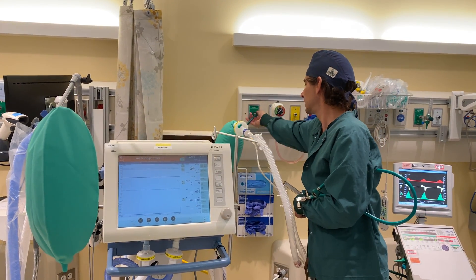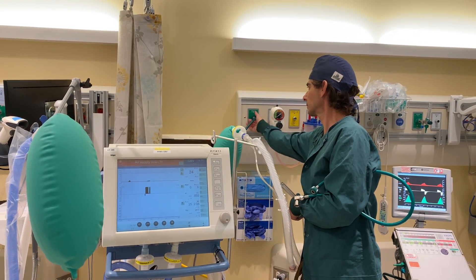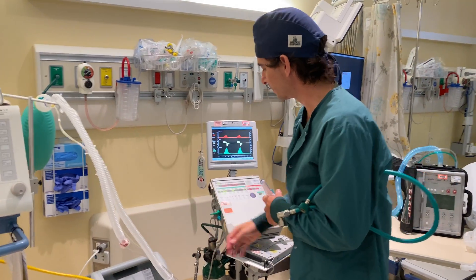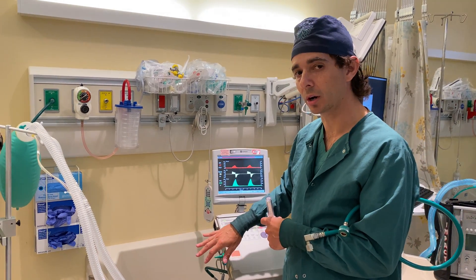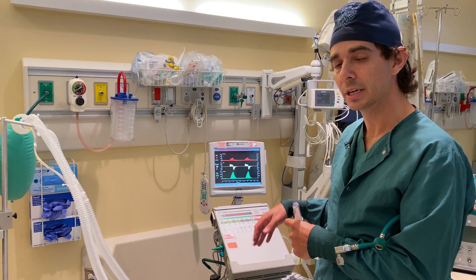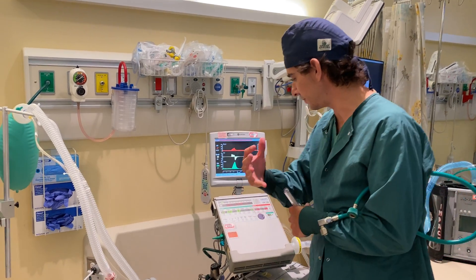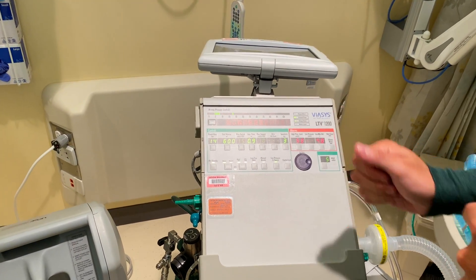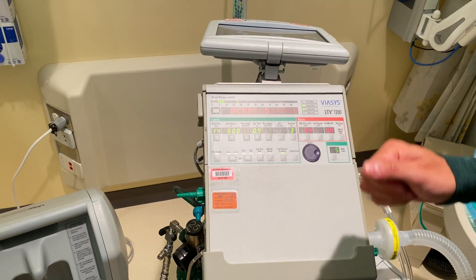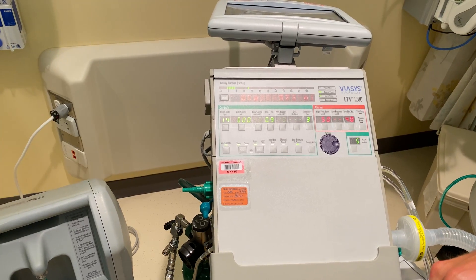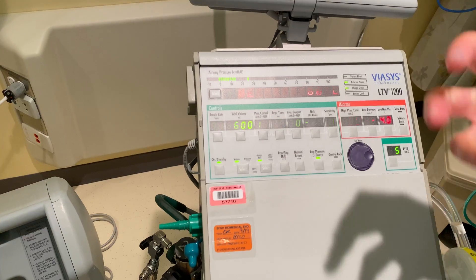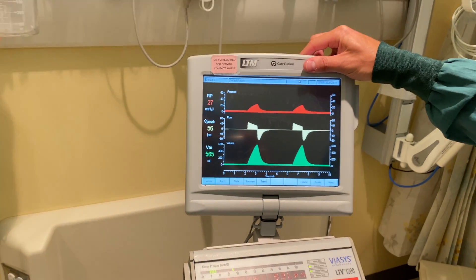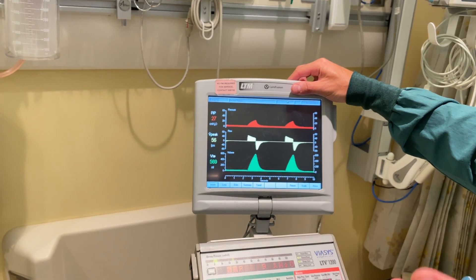I'm going to go ahead and connect this back to source and the ventilator will begin again. Back over to the LTV setup — I can unplug it the same way. It'll run off the battery, and I can unplug it from all air or oxygen connections, and the vent will continue to run, just delivering room air concentration of oxygen. The display on the LTV is generally a relatively basic display. It will cycle through the settings, tidal volume, the frequency of breaths. There is also an external display that has been made for this vent, which provides a more similar experience to a traditional ICU ventilator, though these displays are difficult to come by and potentially no longer being manufactured.